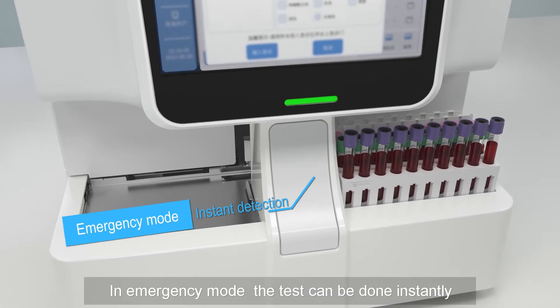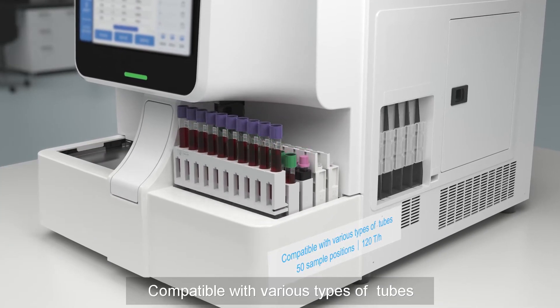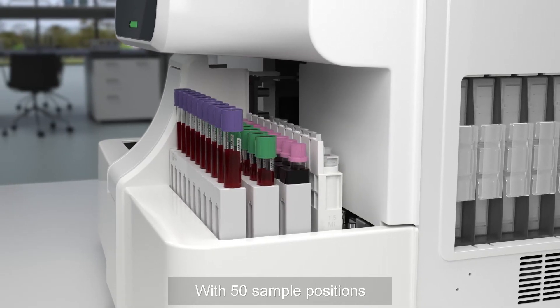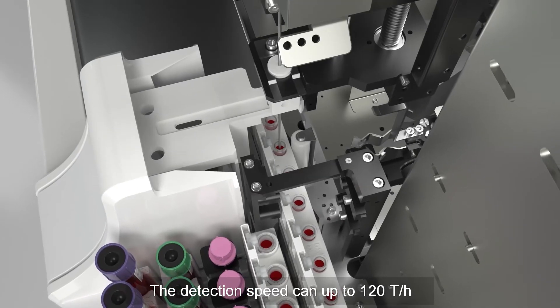In emergency mode, the test can be done instantly. Compatible with various types of tubes, it can puncture to aspirate samples with 50 sample positions. The detection speed can be up to 120 tests per hour.